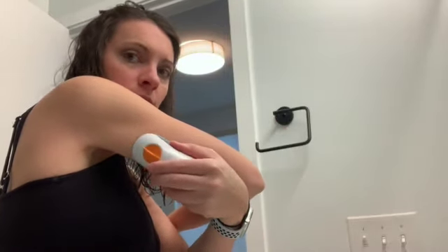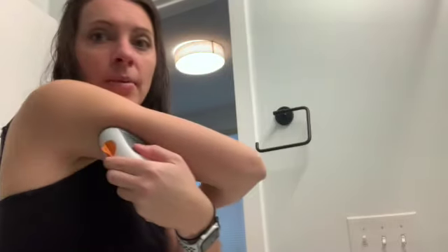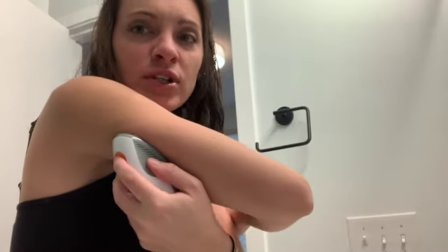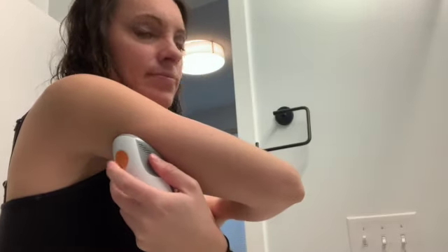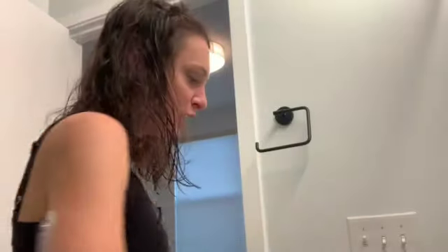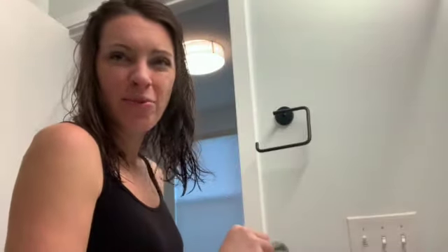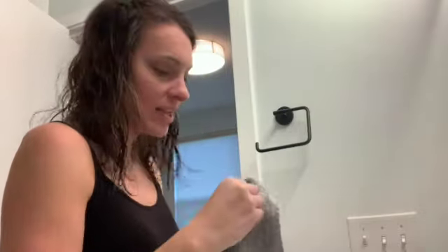This is sticky, so you put it where you want it to go. I'm putting it on my arm and I hold it there for a little bit to make sure it's sticking. Then you hit this little protective thing off and then hit this for it to attach to your arm. That one did not hurt me at all, so that's great. You're still not done — it is on your arm now, but you have to put the transmitter back in. I recommend wiping it off before putting it back in, since I was bleeding on my last one.